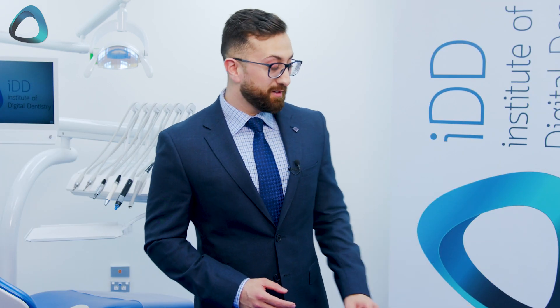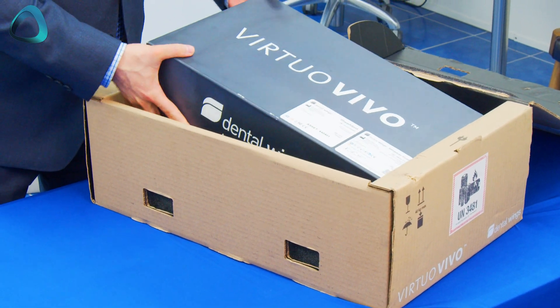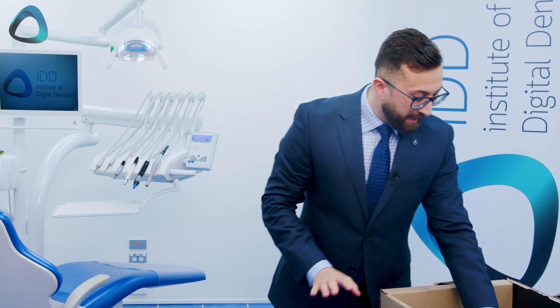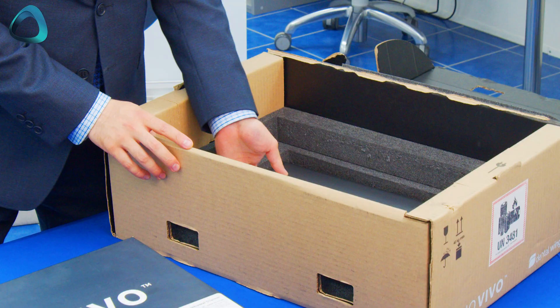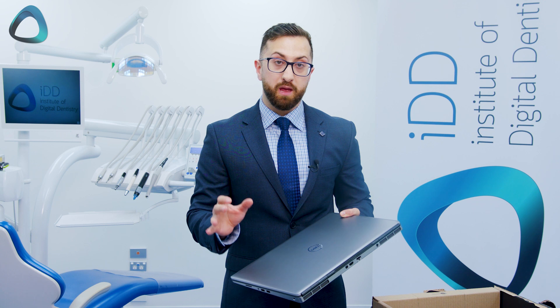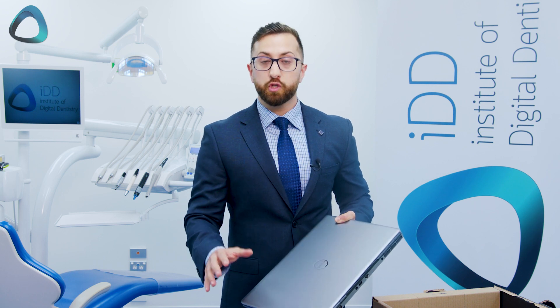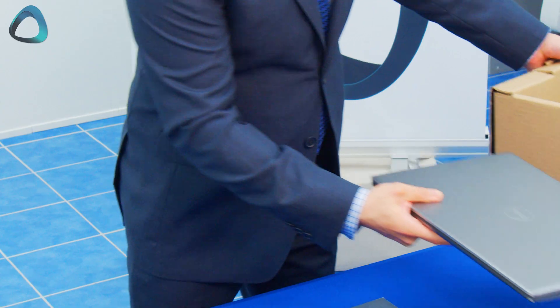So let's open this scanner up and see what we find in the box. The Virtuo Vivo comes in a brown box, and inside is the scanner box itself labeled with Virtuo Vivo. Underneath the scanner you have the installation guide and quick reference guide to the sharp adjust tool, which is basically their calibration tool. Underneath all of this you get a Dell laptop — a performance laptop specifically chosen by the company with software pre-installed for the Virtuo Vivo. The whole idea is to make sure the Virtuo Vivo is as simple to use as possible — just plug and play and start using the scanner.